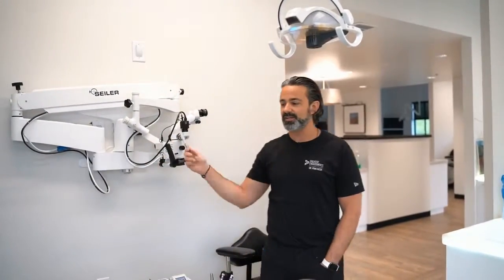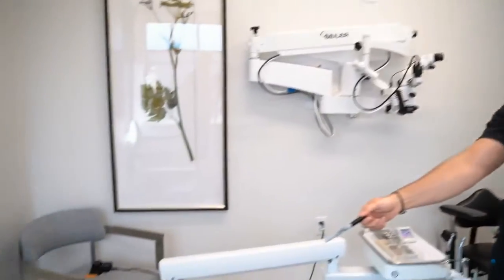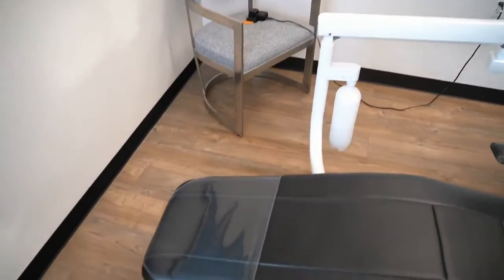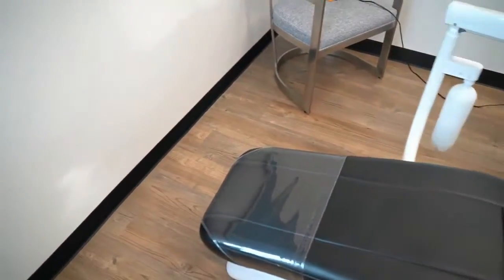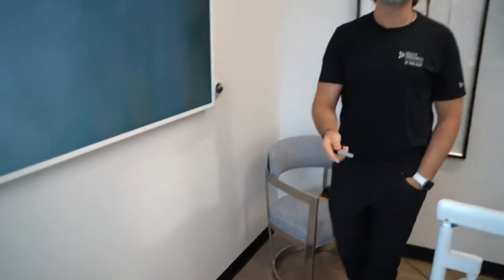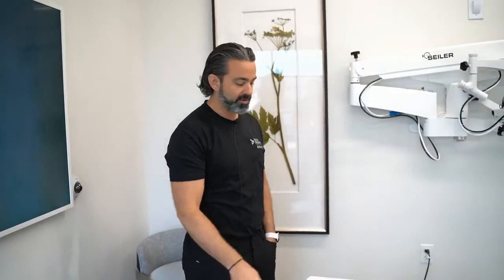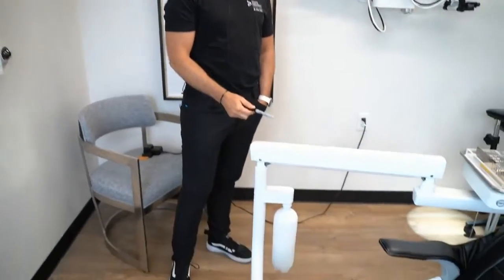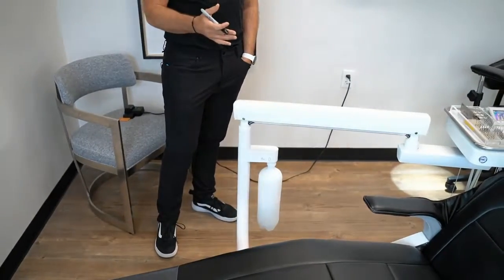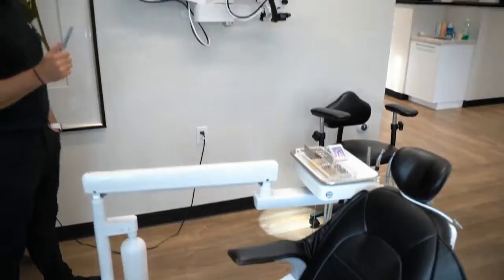Now, I've actually done it at the foot of the chair, and I've done that more at the 6 o'clock position. I've done it from the ceiling, and I've actually done it from the floor right here, almost like where this arm is. People get creative. There's a lot of different configurations, but I'll tell you the one thing to learn from that.